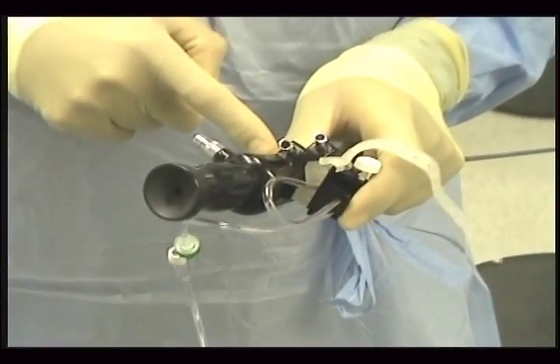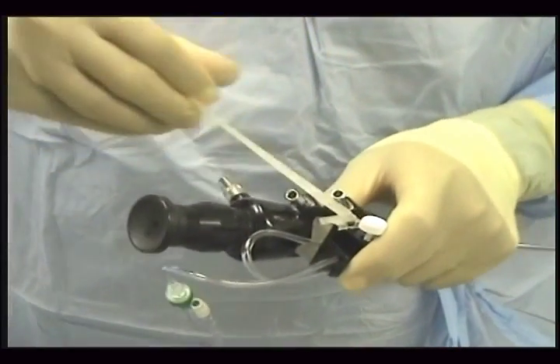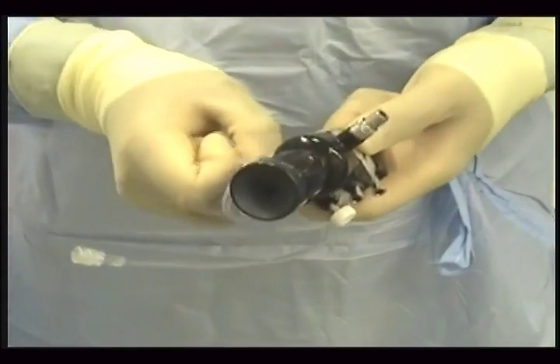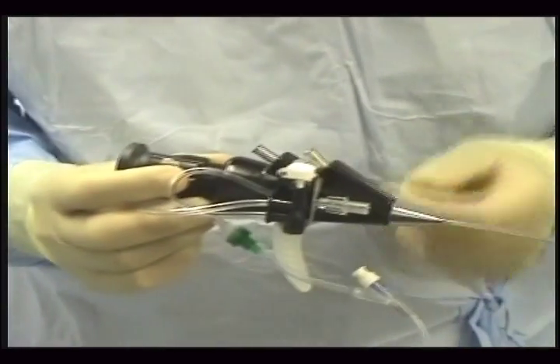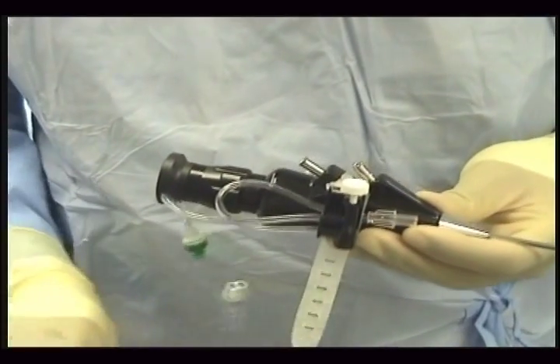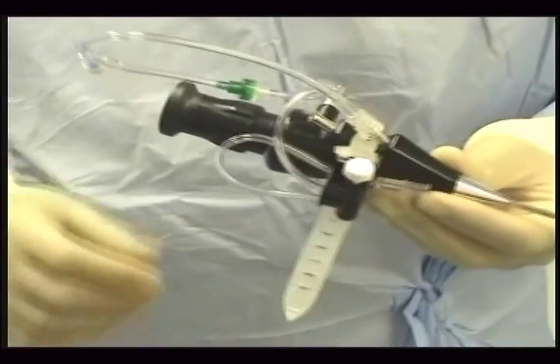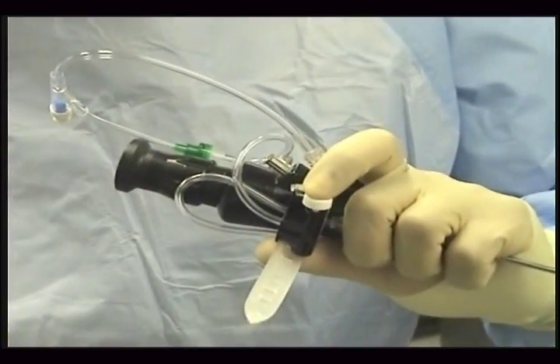Here is the finger, here is the thumb. After you have held this in place, you bring the strap around like so, go around it, and then fix it to the strap hook and the valve is mounted. The water inflow will come from here from the back and the outlet port will be connected to the irrigation port here on the urethroscope. This will be tightened up and you now have a mounted valve for single-hand use.